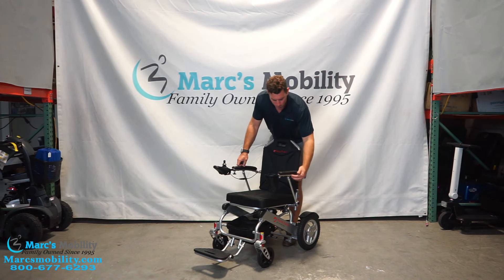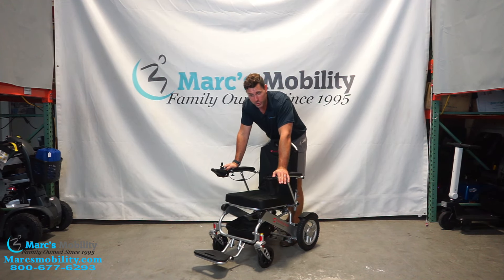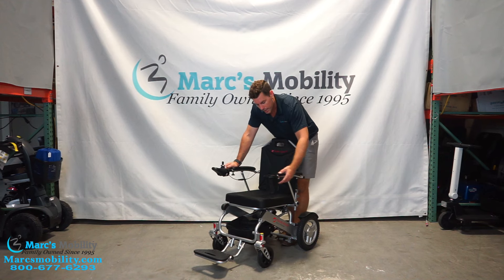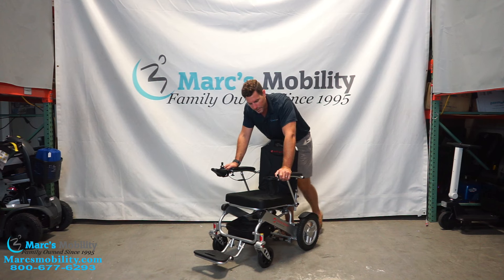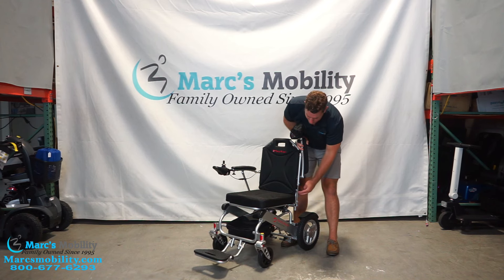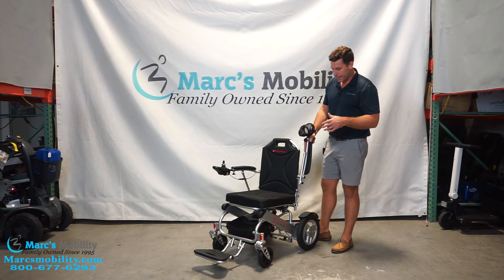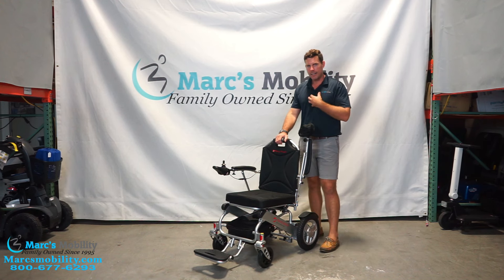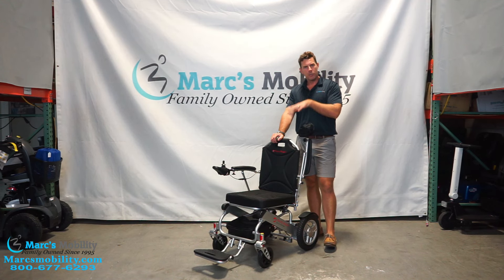The first thing I want to show you is the arm supports. You can put all your weight on here — I'm only 220 pounds — and the arm does not even budge. Some units have plastic underneath where the arm can flex a little, and I know that's important for users who want to push off the arms without feeling like it's going to give out. The reason this is so sturdy is the armrest has a metal piston inside, not plastic components. This contributes to slightly higher weight, but it's constructed for durability up to 395 pounds. We've sold hundreds of these units and people at max weight capacity are still doing great.